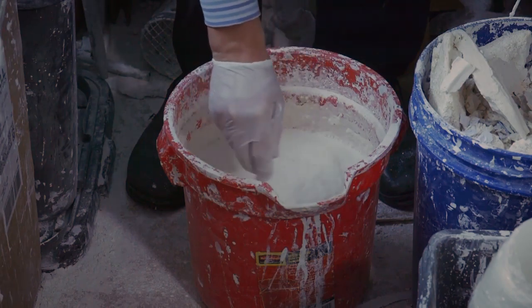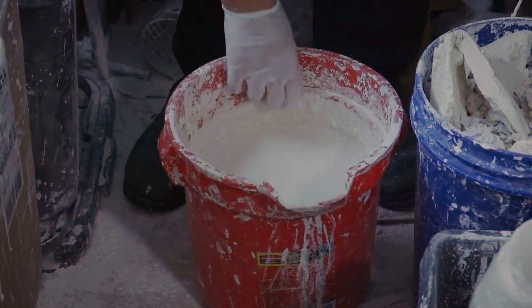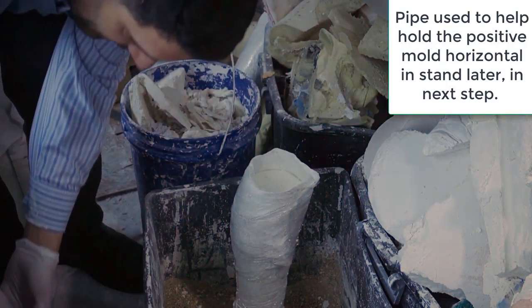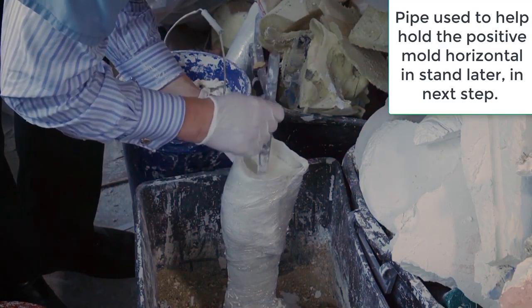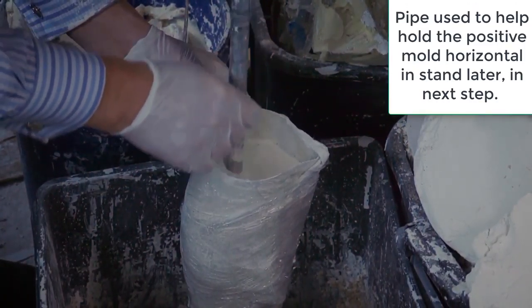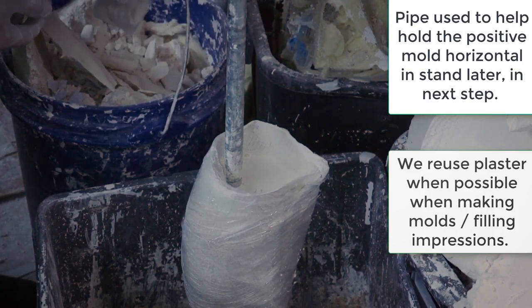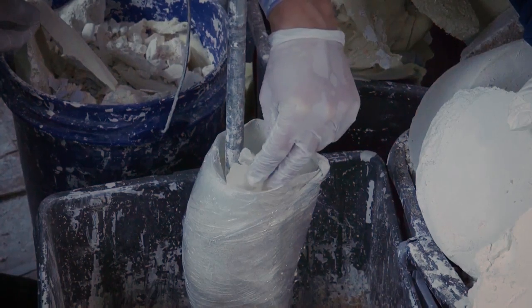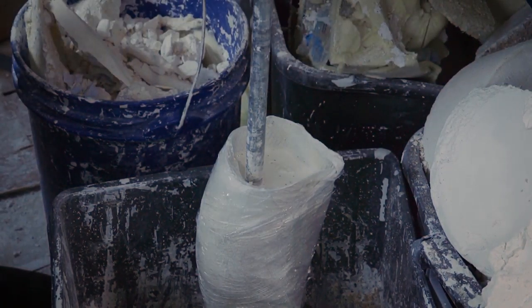A too-watery mix presents a real problem. We're ready to go — we're going to pour our cast now. We pour the mold and put our pipe in. I'm not all the way to the top yet on purpose, because I want to show you this process for getting rid of bubbles inside the cast. We can also reuse leftover material — it just becomes part of the next mold. That's similar to what we discussed with the TLSO cast, where you can reuse AFO parts.